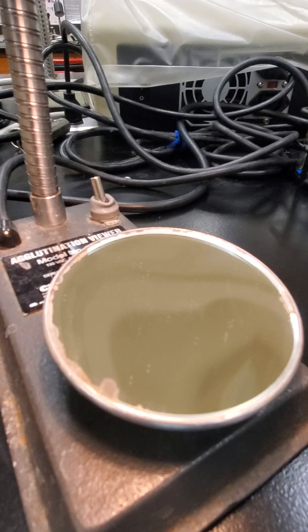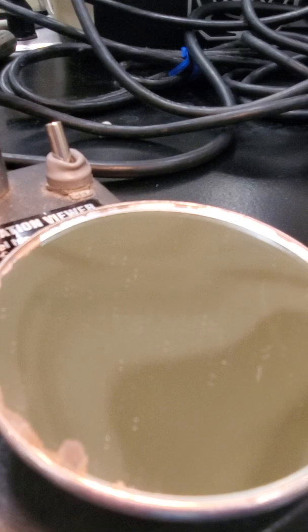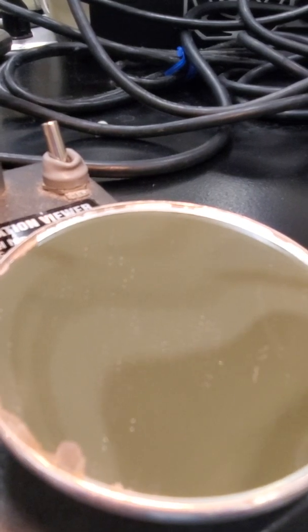If you look in the outlines, it outlines the grading. So a 4+ reaction is just a solid chunk, and then a negative is no agglutination at all. A negative is just kind of like a smoky look. I'm just going to zoom in on this a little bit so you guys can maybe see it better.